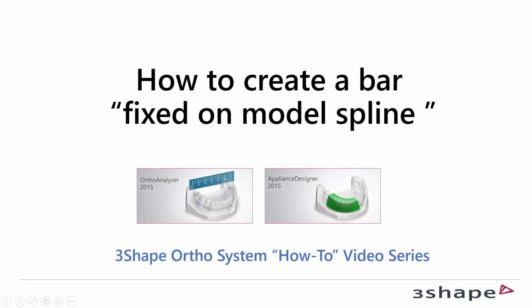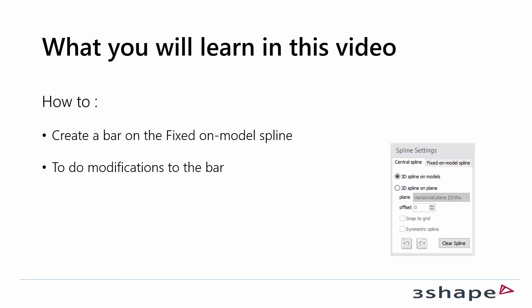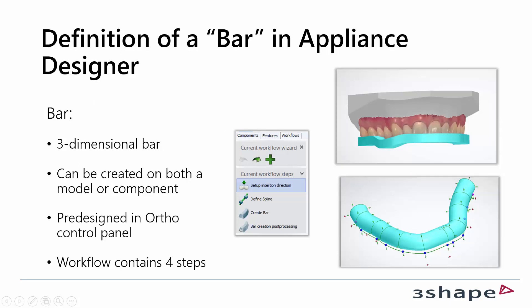In this video we will show you how to create a bar fixed on model spline. What you will learn is how to create a bar on the fixed on model spline and how to do modifications to the bar.